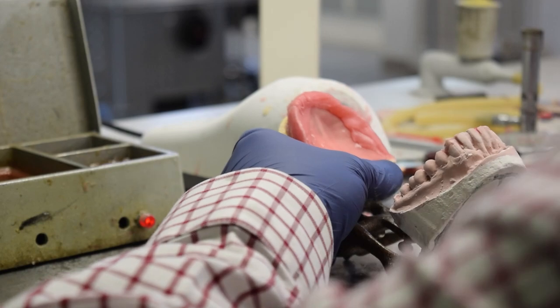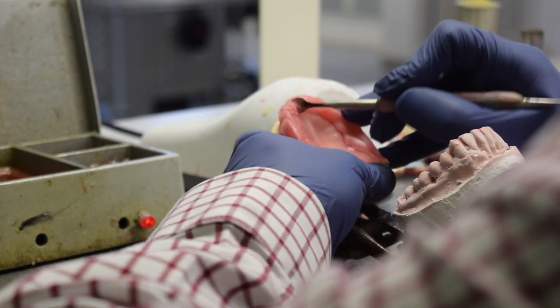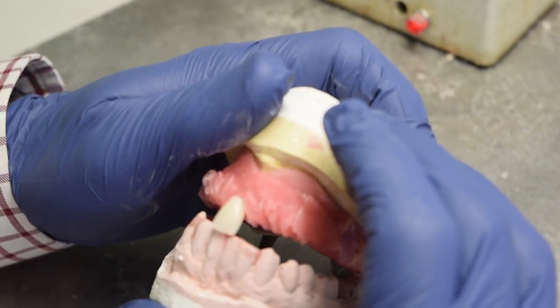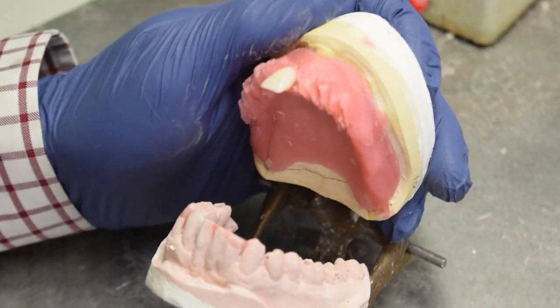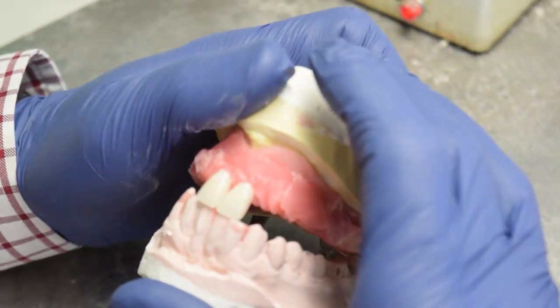An experienced lab tech will begin meticulously adding teeth to the wax rims. One by one, Arctic Teeth by Kulzer are placed with utmost care in regard to aesthetics and functionality.